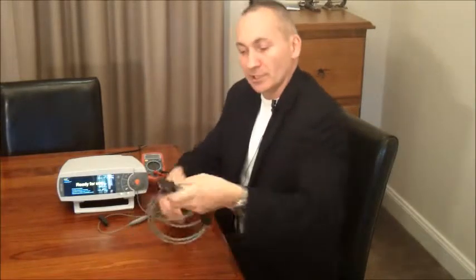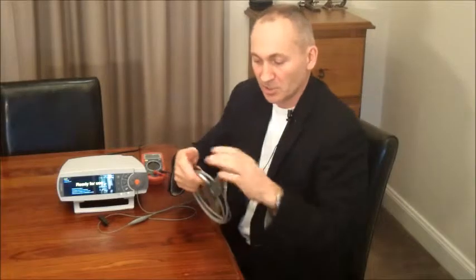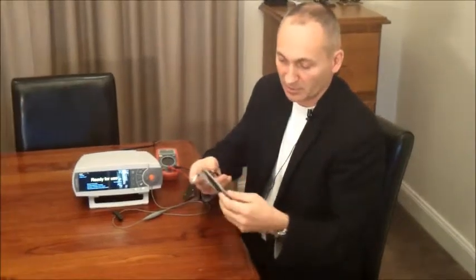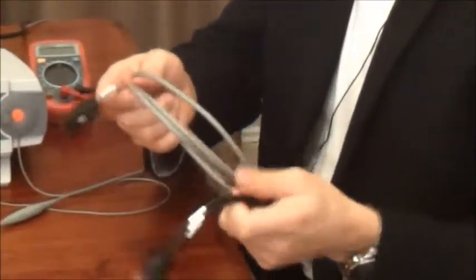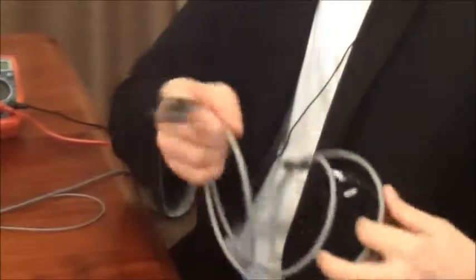For that all you really need is the interface cable and a PSG machine. I don't have a PSG machine but I'm going to show you how to set up the CENTEC device so that you can calibrate the signals.